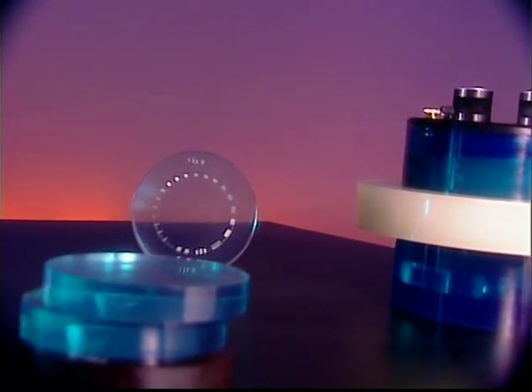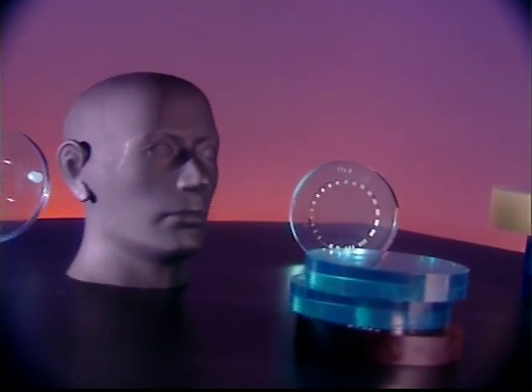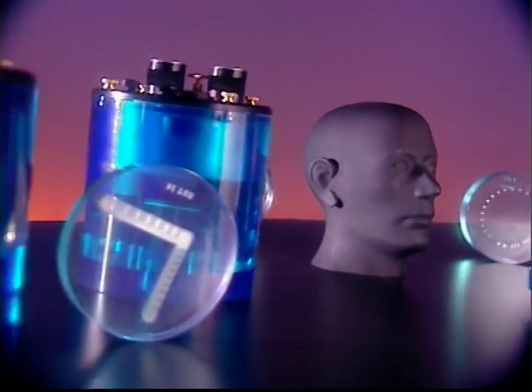I get a lot of pleasure out of seeing the evolution of products, out of working with people and getting their ideas. We heard a lot of good ideas and observations from people in the field. We incorporated it into a design that enables the Phantom to be mounted off the case. We even have details like a level which is contained in the case. This kind of design evolution really is a result of both our internal efforts, but also our customers are bringing to us a great deal of useful and helpful information, and we look forward to that continuing challenge of meeting their needs as we move forward.